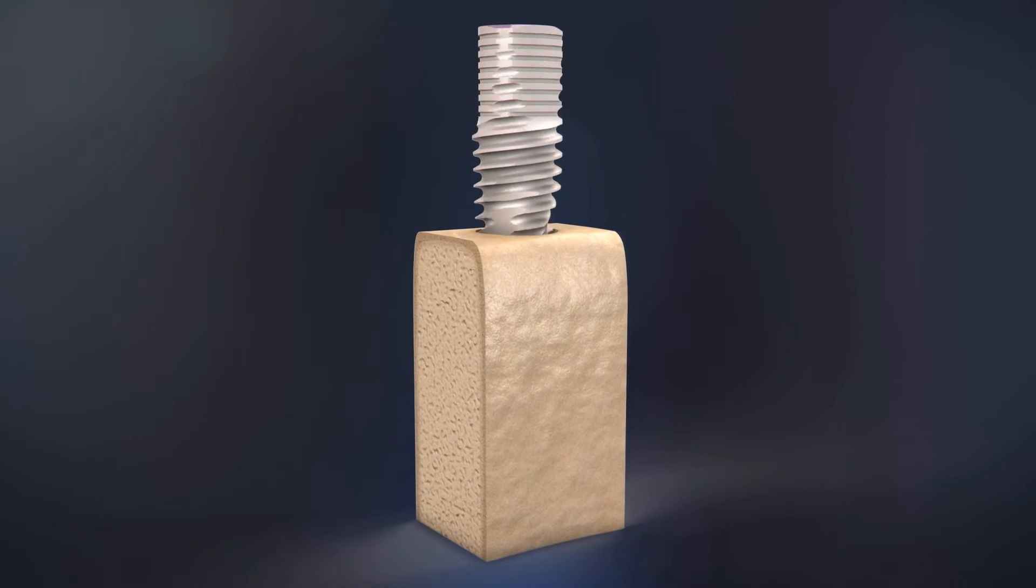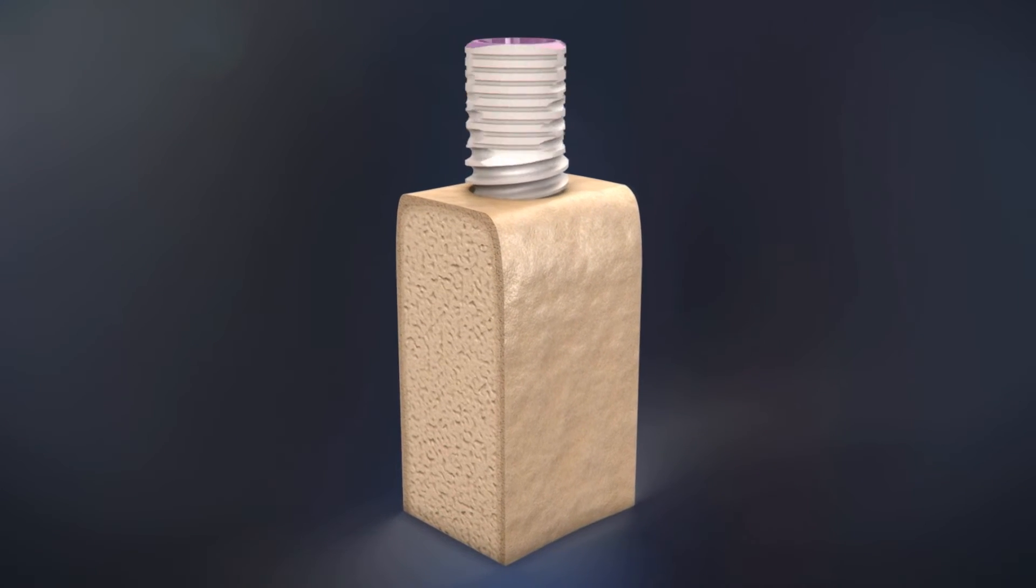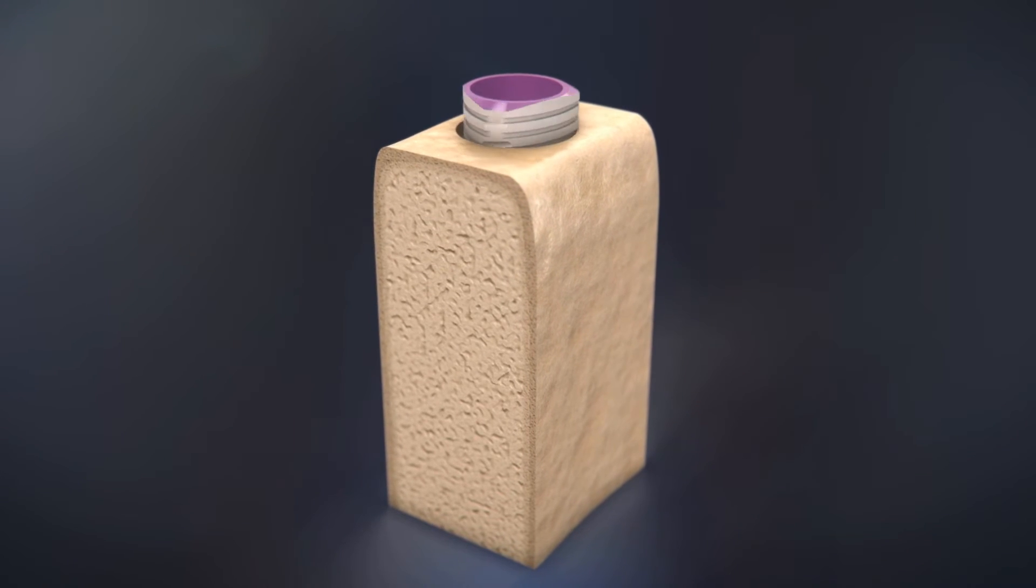The variable self-tapping double thread enables a quicker, smoother, and controlled implant placement procedure.